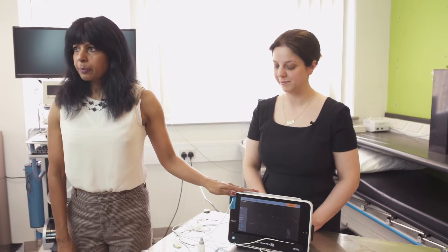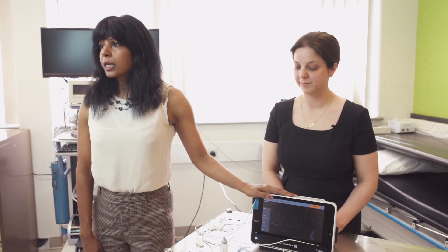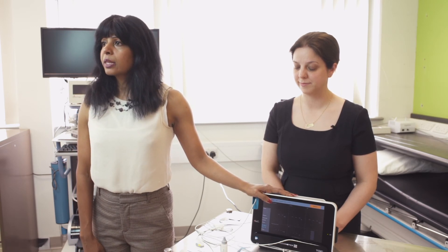The machine can be put back in its bag and returned to the Respiratory Physiology Department. If it is before nine o'clock, please return it to main reception and explain that it needs to be returned to Respiratory Physiology. If it is after nine o'clock and before five p.m., please come up to the first floor to the Respiratory Physiology Department and return it there. These pieces of equipment are very expensive — several thousand pounds — so it is important that they don't get lost in transit. The information will be downloaded and forwarded to your clinician, who will use that in combination with the information from your consultation to decide on a diagnosis and plan of action.